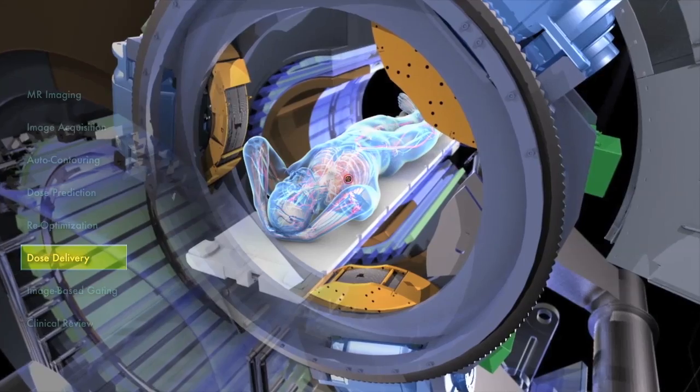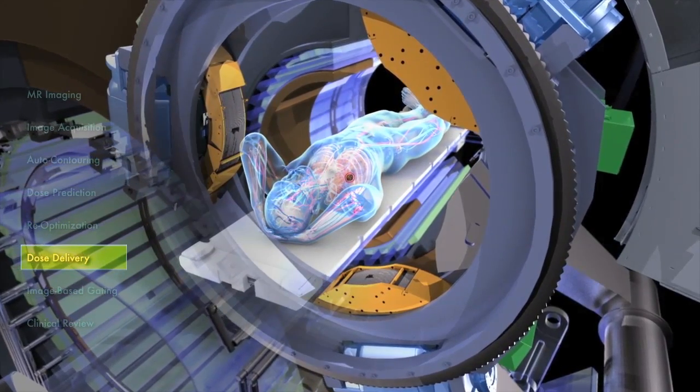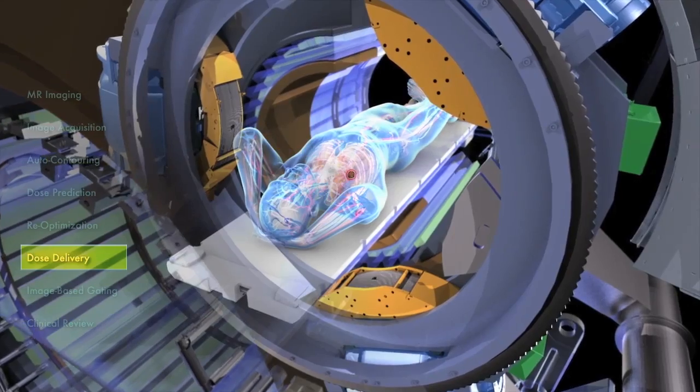The tracking of the target and critical structure positions, as well as delivery parameters, is continuous during treatment.